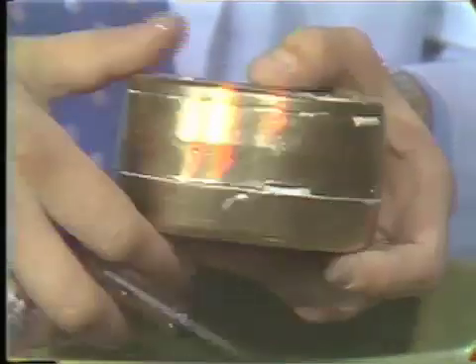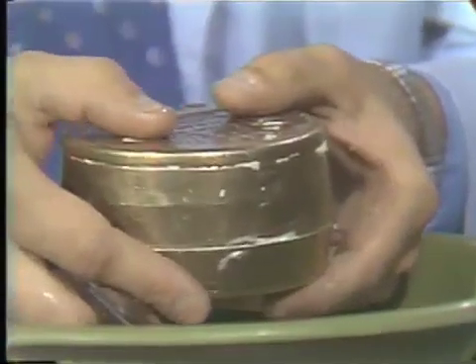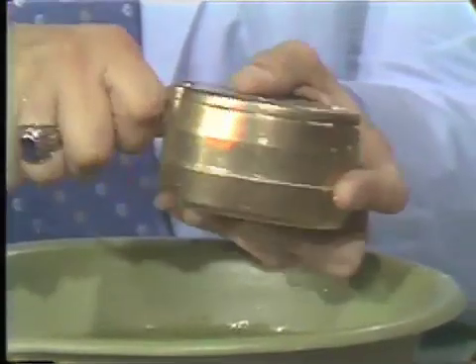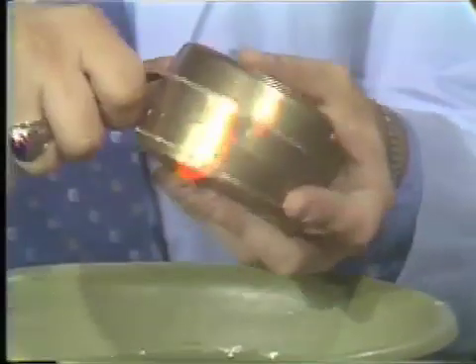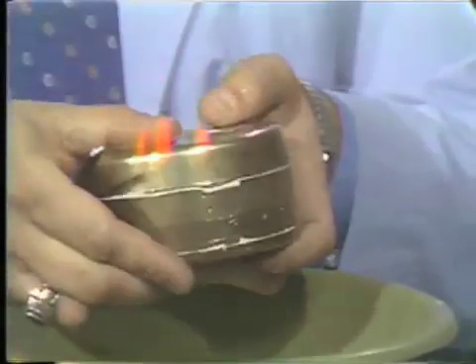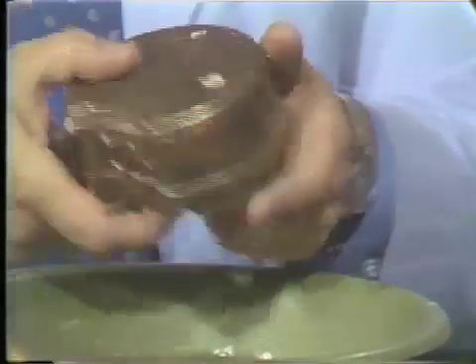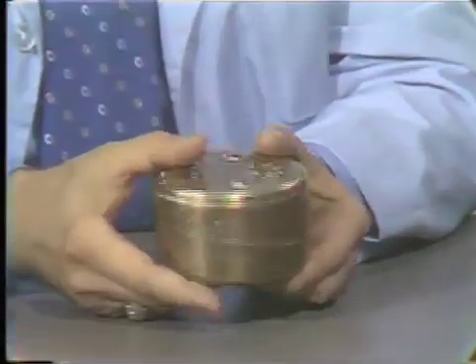It's important to remove some of the stone from these keys because later on when we are deflasking the denture after it is processed, it is with these keys that we will be separating the flask. So at this point we like to remove at least some of the plaster so that we can get a separating object into these keys. Many times we'll use a large screwdriver to do this and it has to fit into those slots. In the intervening time, I have completely cleaned off the lower flask and you can see it here.